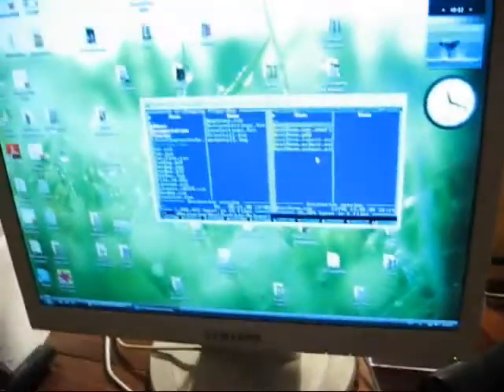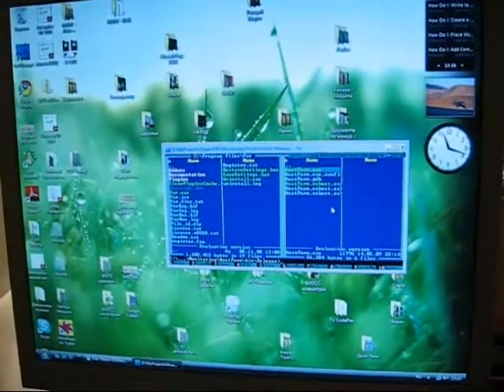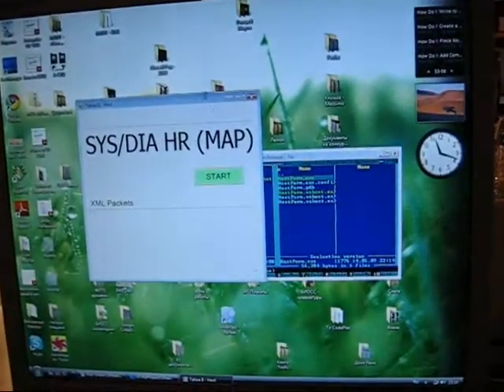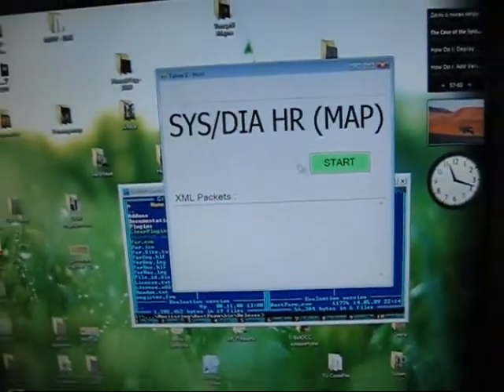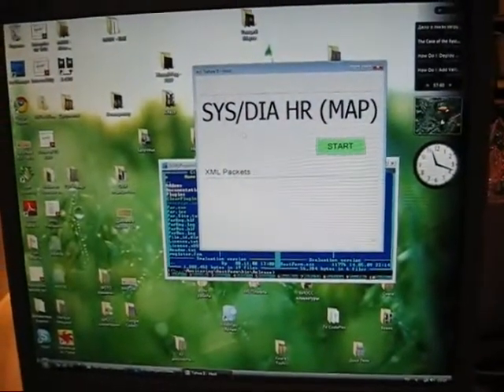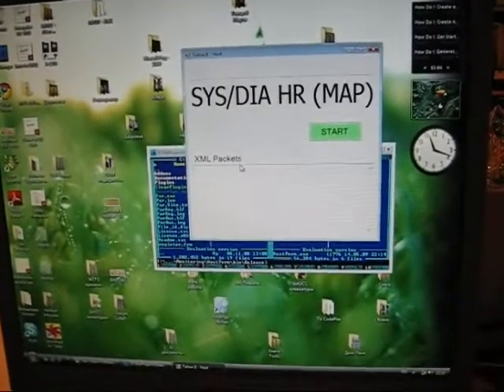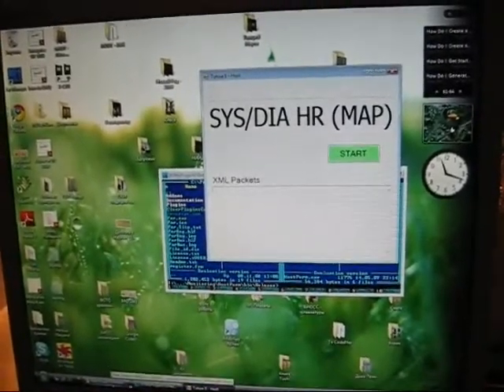Let's look at my PC. On my PC, this is the Health World Gateway. We have two software components: a WinForm application for demonstrating results — we have received from the personal monitor systolic, diastolic, heart rate, and mean arterial pressure during the demonstration process — and an ASP.NET web application which is the real gateway for information.